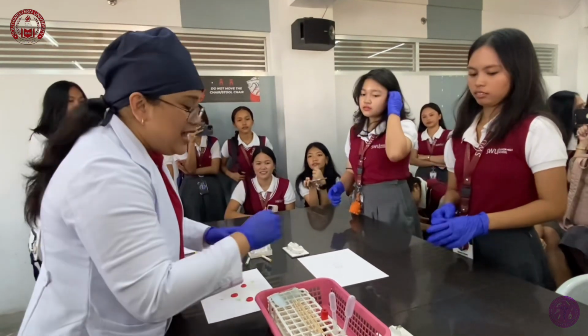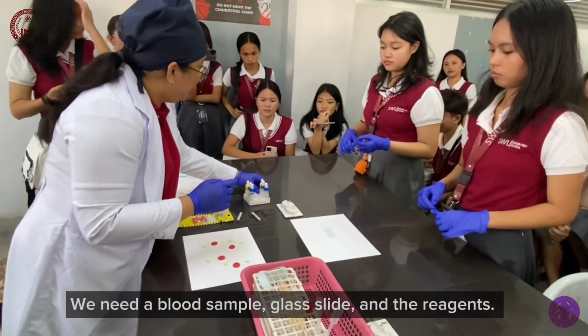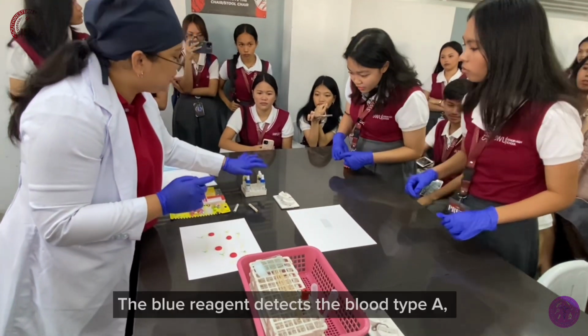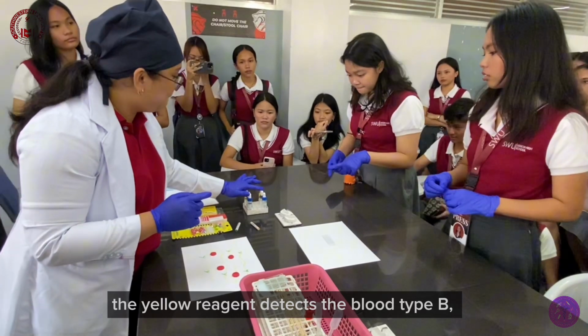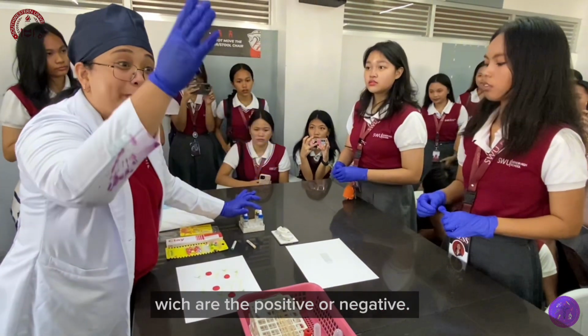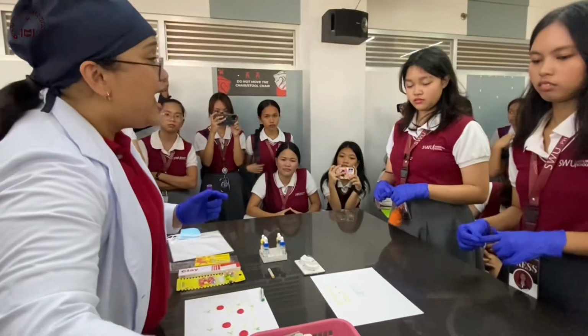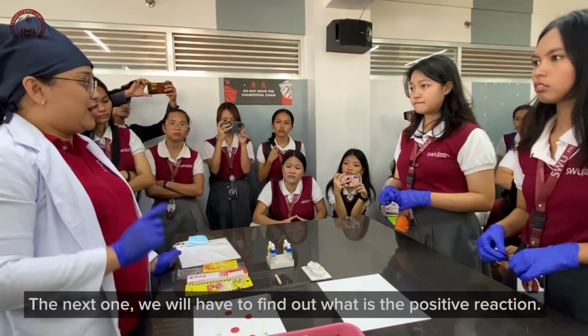Alright, everybody. We need a blood sample, a glass slide, and the reagents. Of these, the blue one detects blood type A, the yellow one detects blood type B, and the colorless one detects the Rh blood type, whether positive or negative. And we will have to find out what the positive reaction is.